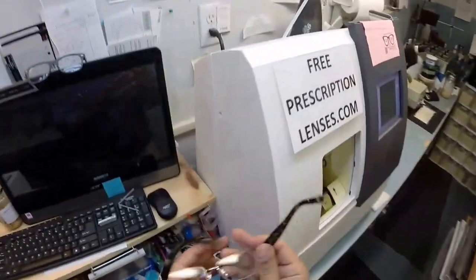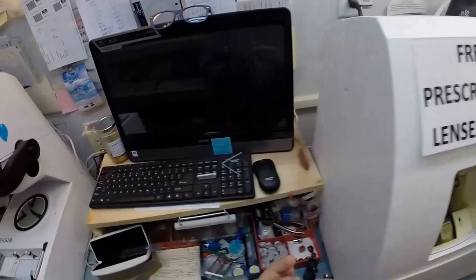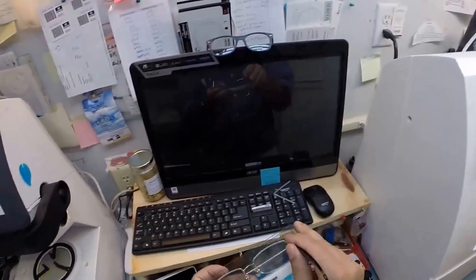This is the gold with the brown marble and of course all the bling. Versace is going to bring the bling. Beautiful frame. So let's go ahead and begin cutting your prescription lenses for this. I've got to take one of your lenses out, not the one that says Versace, always work with the right lens. I'm going to take one out and trace the shape of it.